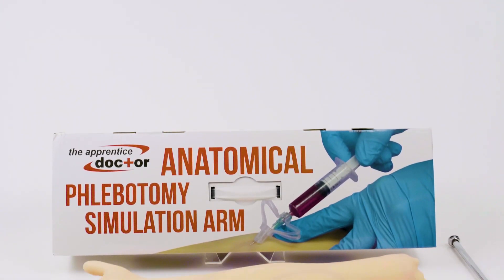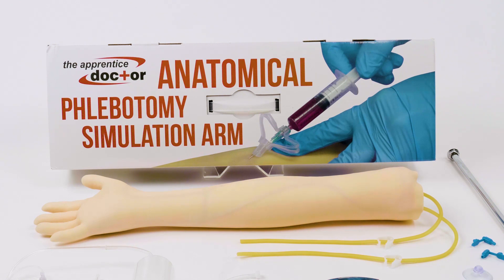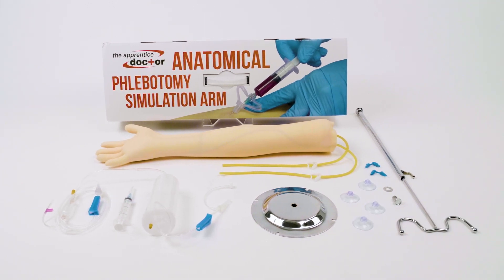The apprentice doctor phlebotomy training arm provides a realistic experience for students to learn how to draw blood like a professional before working on patients. This true-to-life arm features the cephalic and basilic veins.